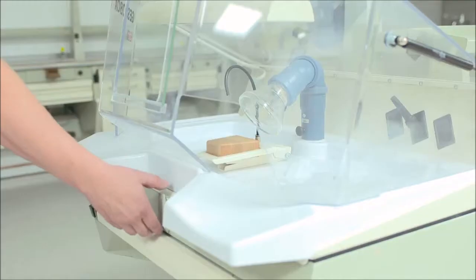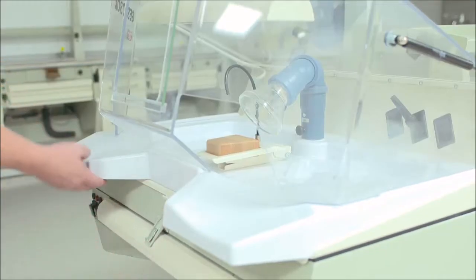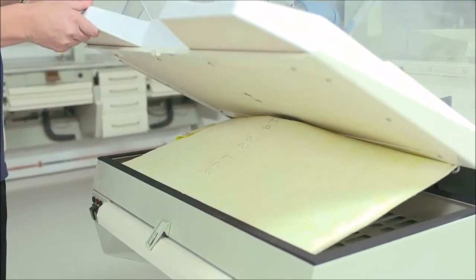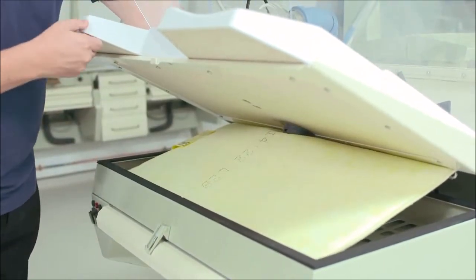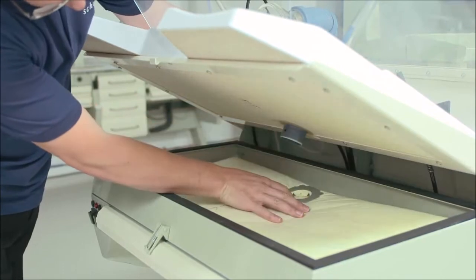To replace the filter, press the lever down, lift up the mechanism, press the black knob to release the filter and it will detach.